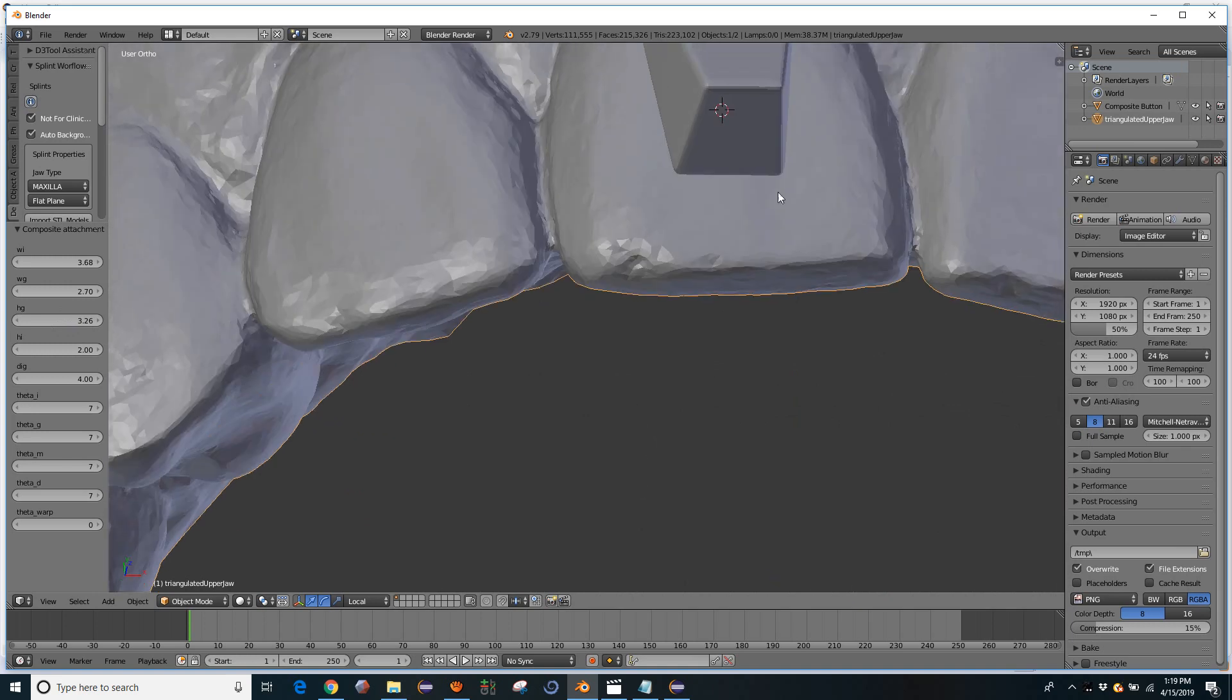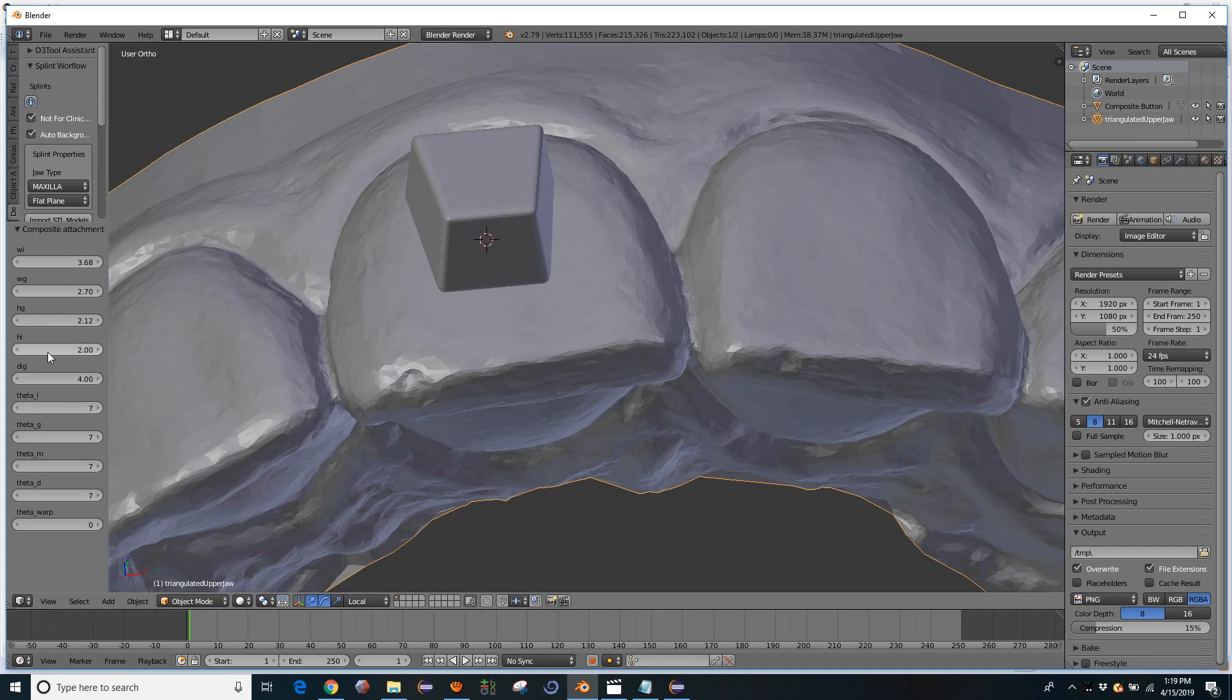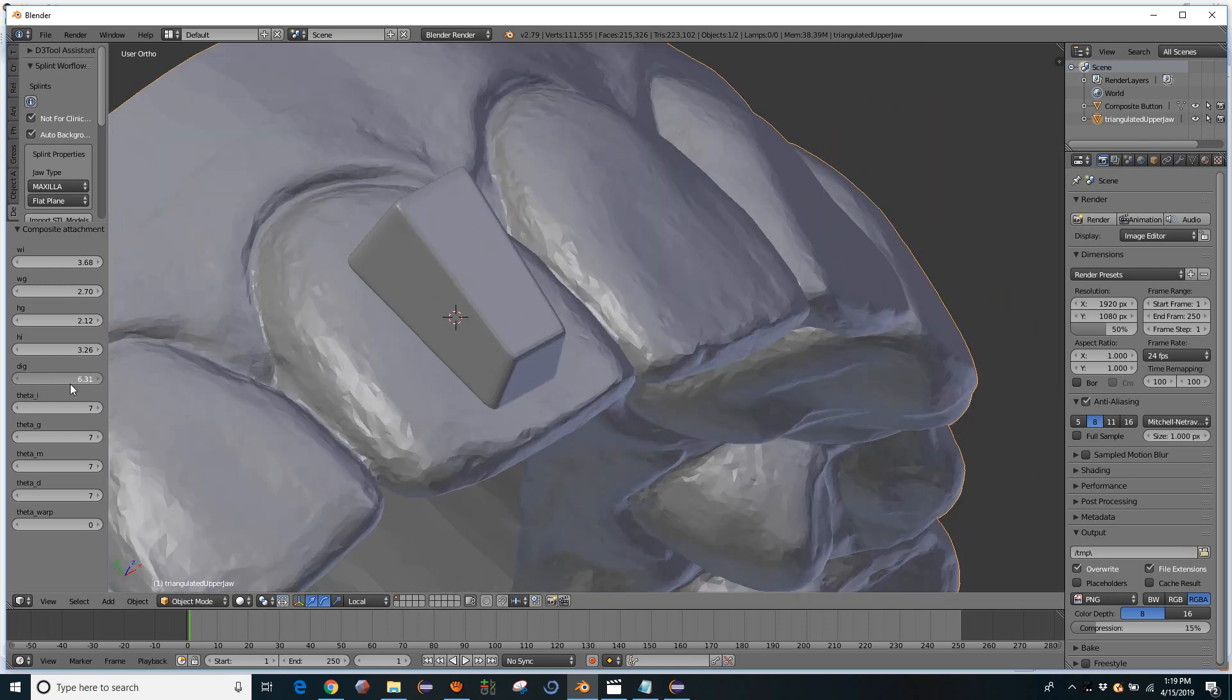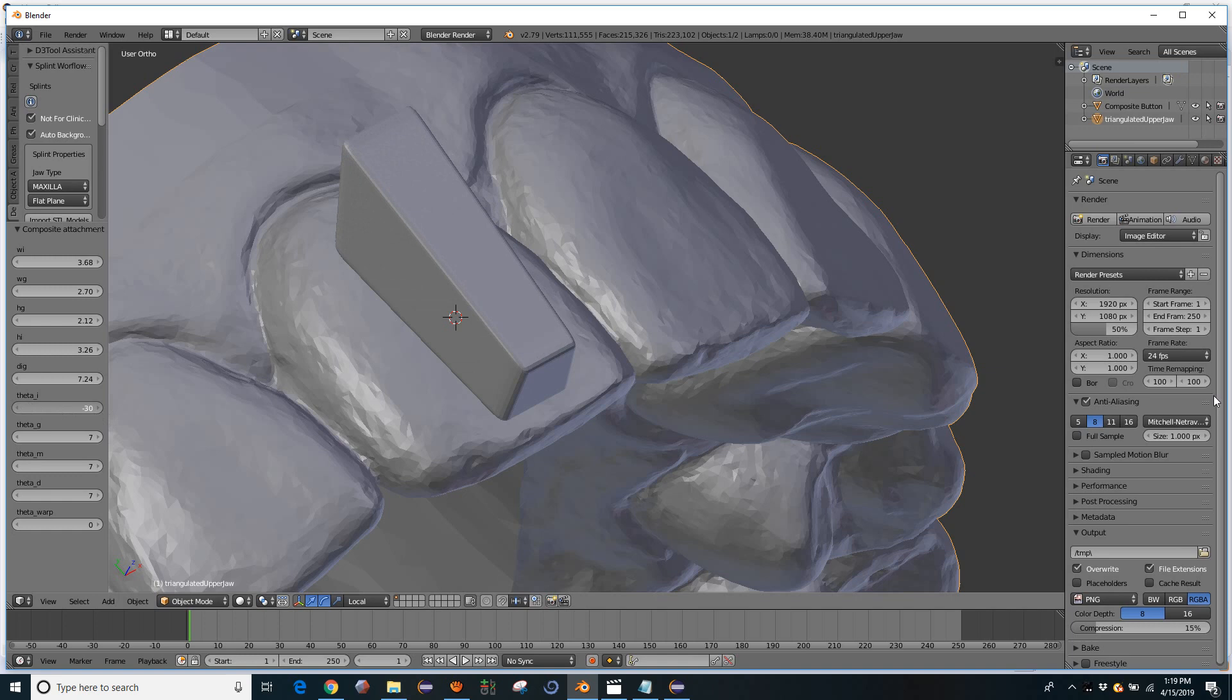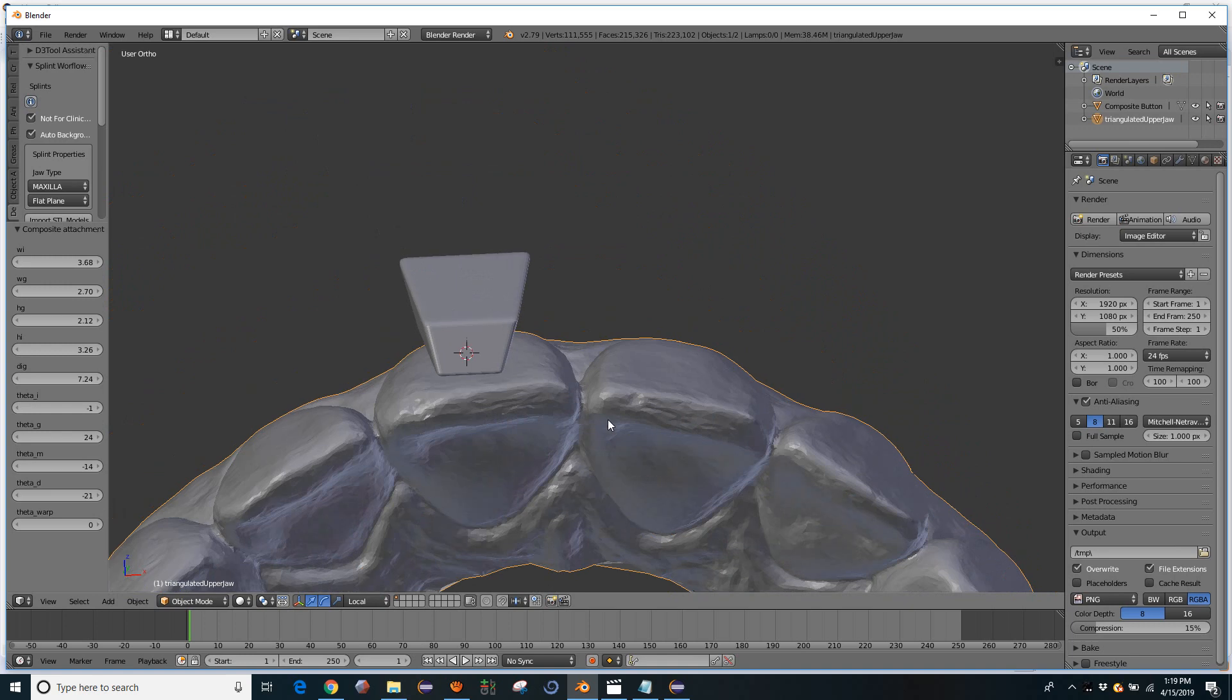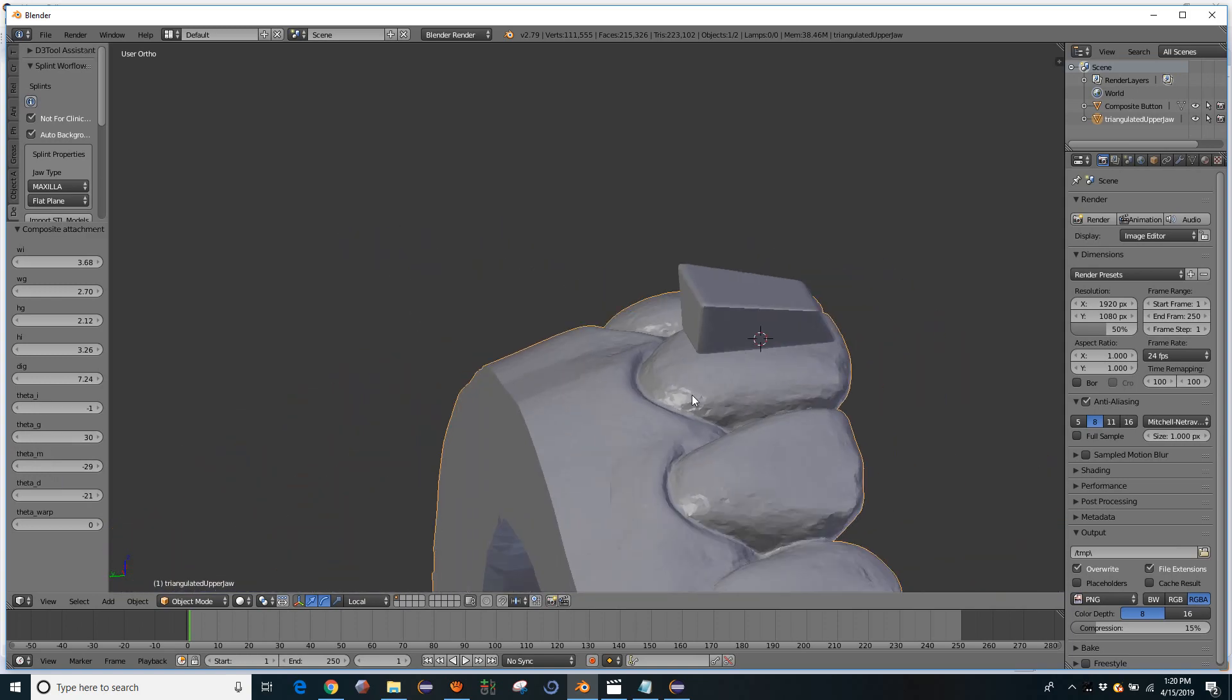You can also change the height on both ends. You can change the length, which I'm calling the incisal and gingival distance. Then we can also give positive or negative bevel to each of the ends and also to each of the sides. You can make any shape you want here by messing around with these parameters.